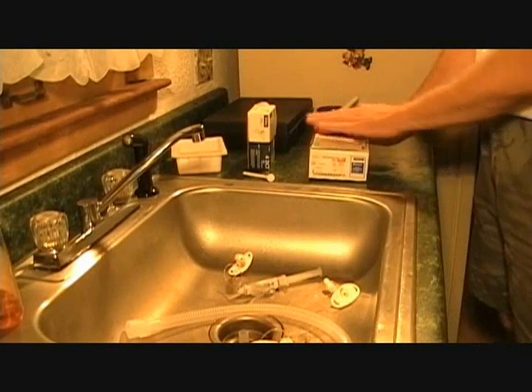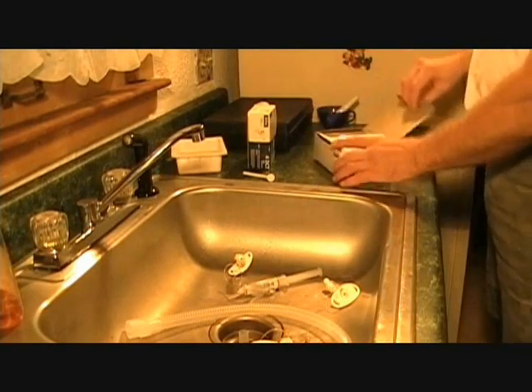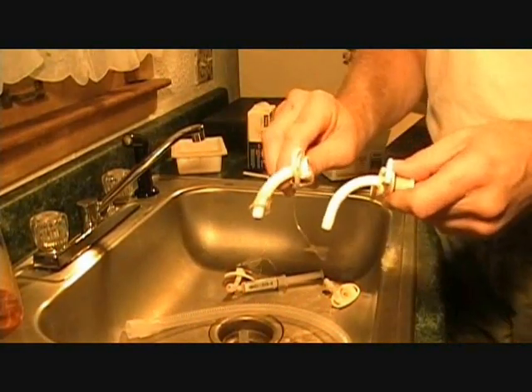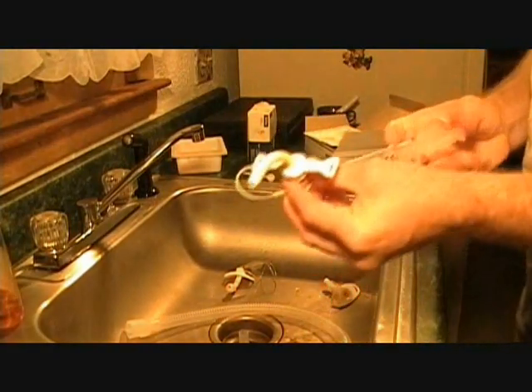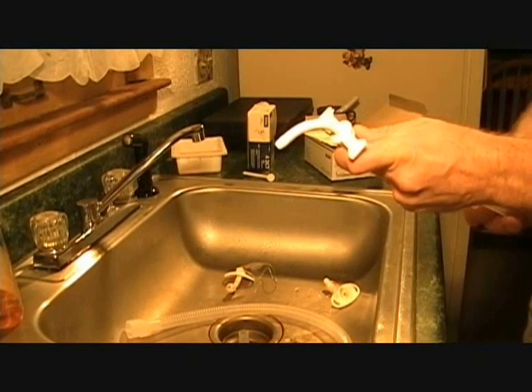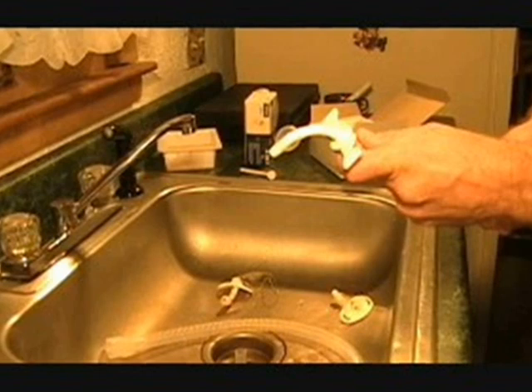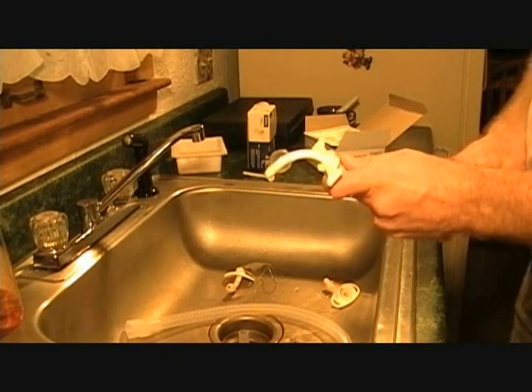This other tube is my favorite. You can see how I'm petting the box — it's a very good tube. It's much slimmer, actually softer, and made of silicone instead of vinyl. Around the shaft it does have a cuff, but you can't see it. In comparison, the other cuff is like a big trash bag; this one is so sheer that when inflated you'll be able to see light through it. In fact, it's so sheer you don't use air — I'm using air here for demonstration, but when the patient is actually using it you must use sterile water, not even saline. It does get big enough to fill the trachea, and when deflated it shrinks back to the size of the tube because it is very tight rubber.